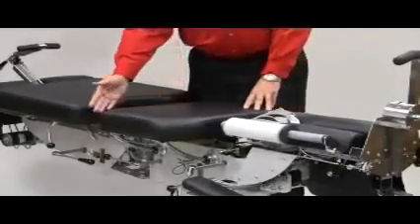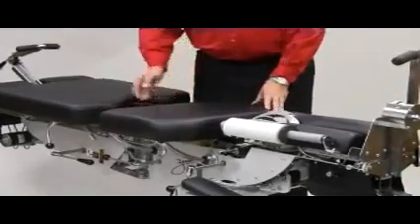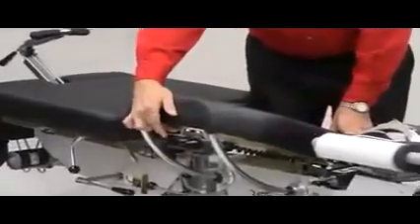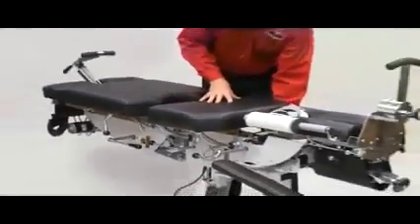It's also available with an optional drop at the caudal edge under the edge of the ilia at this pivot point. And we've also included today the operative touch buttons. Operate, raise and lower the table from either side. And then lock it again at any position. And that concludes the thoracic section of the Zenith flexion table.